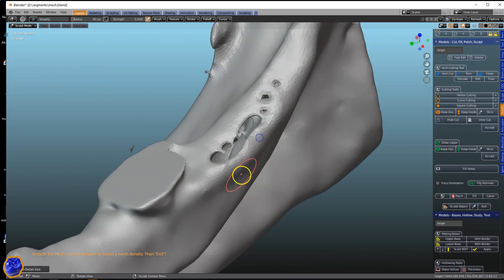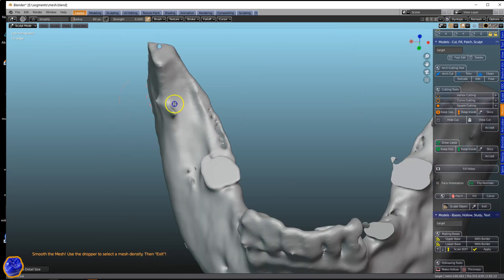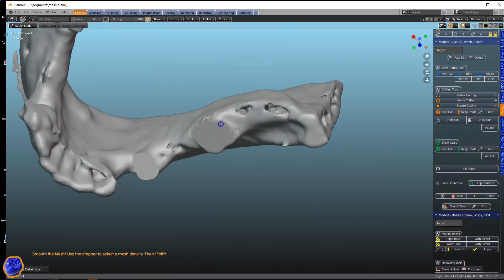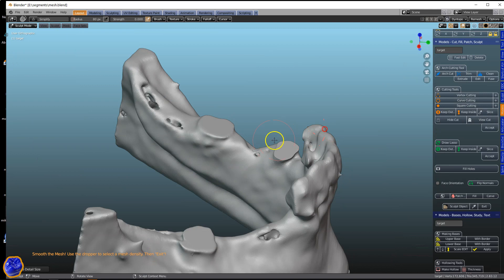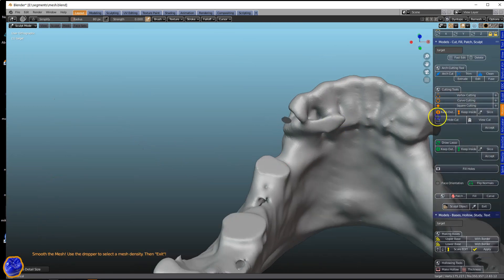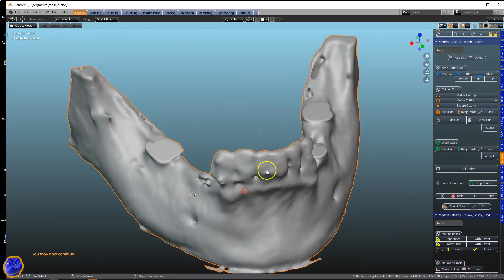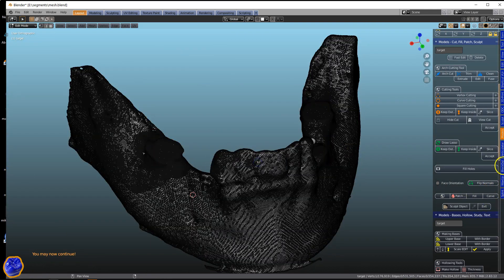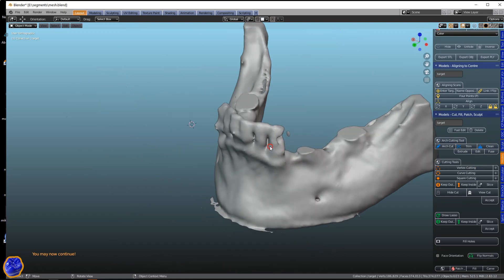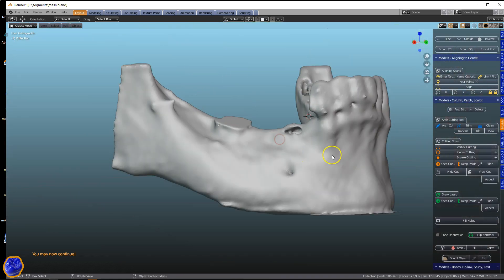Then we would like to sculpt and smooth the model. We are always looking for a good mesh structure, so in case you wanted to print it, you don't have problems printing either. Note that there's a few other objects in the scene. So in the model designer, choose the faces that you want to keep and then click on Clean.